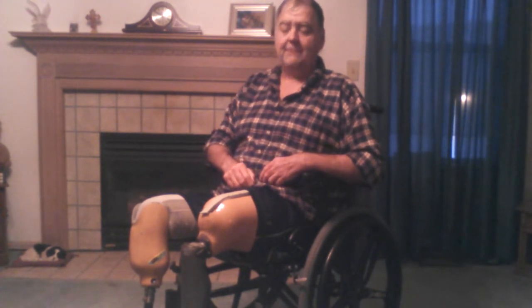This is my trainer leg and it's really big and huge. One of the things I discovered is that putting on and taking off this thing kind of takes a touch. Getting it off with socks is a little bit different than the very first time I put it on — I did not have any spacer socks.